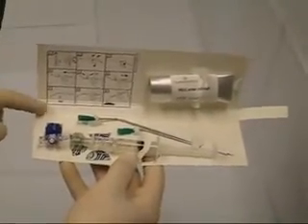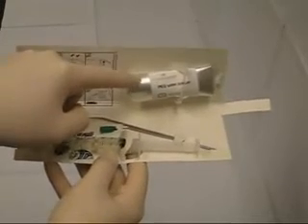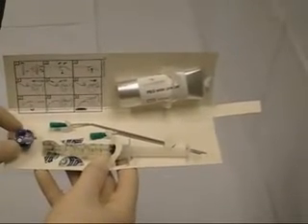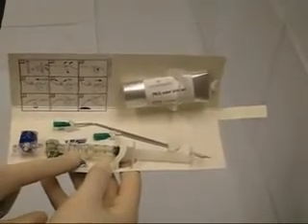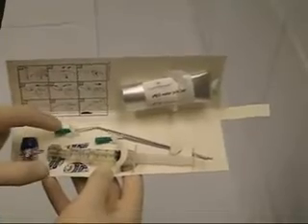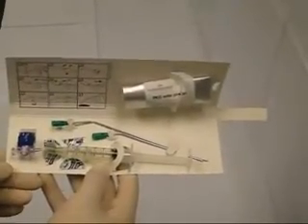On the retainer card you will find pictures outlining the instructions for use, a pouch containing the powdered PEG ester, a vial adapter, a syringe containing the buffer solution and cross-linking components, and a choice of two lengths of cannula.